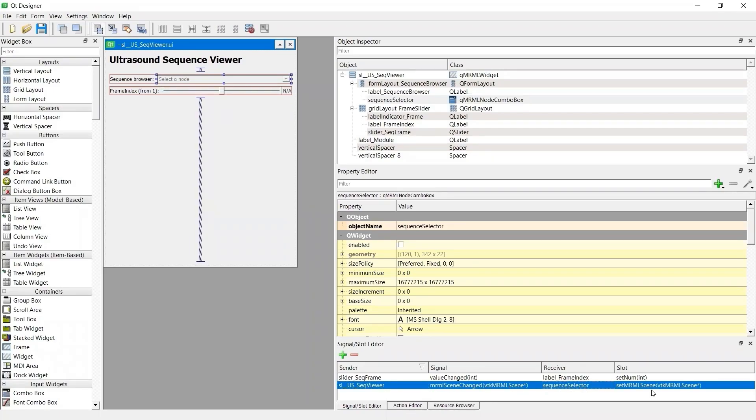If you forget to connect this signal slot, your module will not update when you load a new scene file. Great!